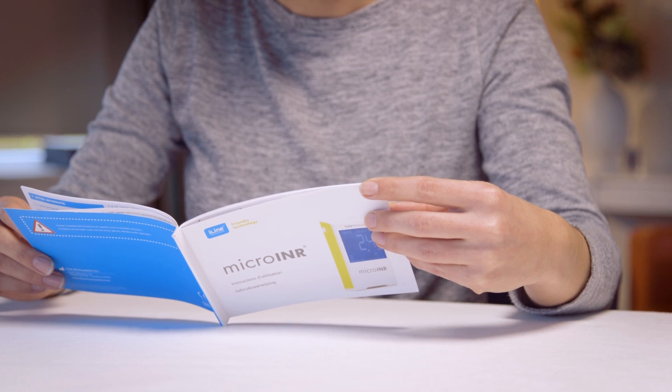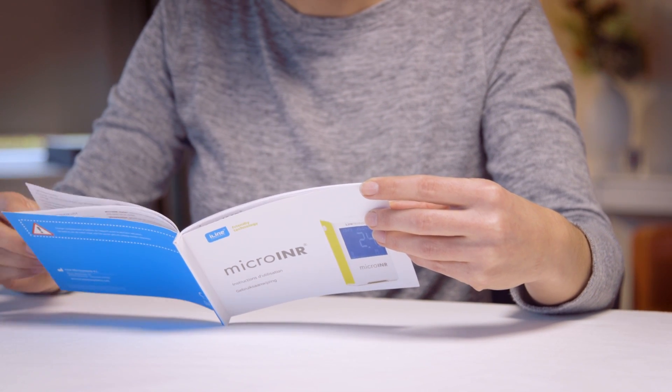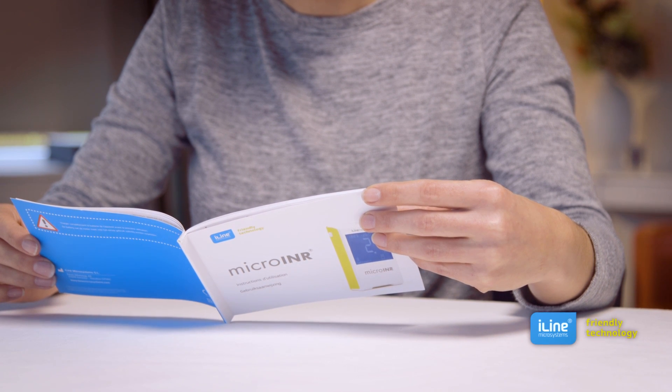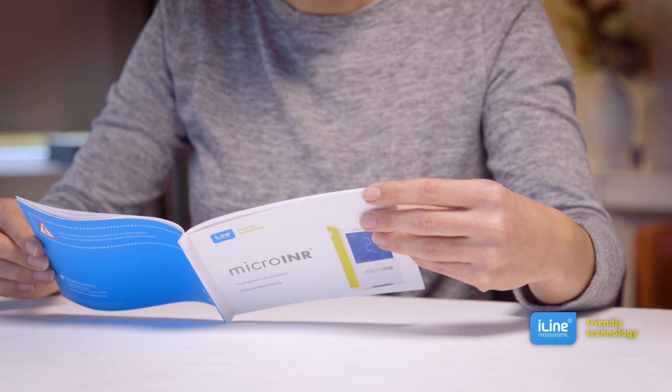Read the instructions for use for further information. If you have any questions, please contact your doctor or distributor.